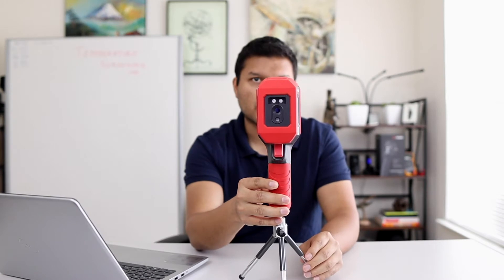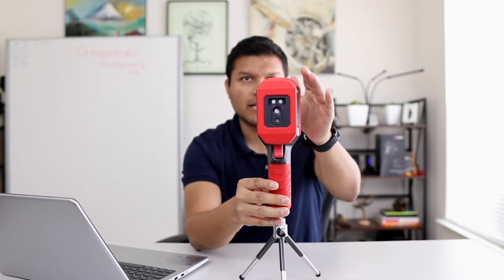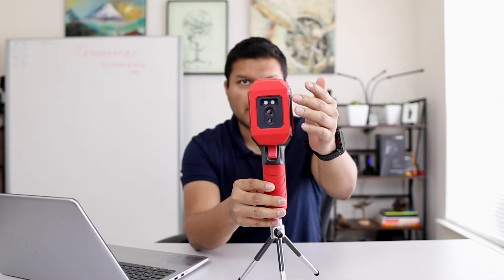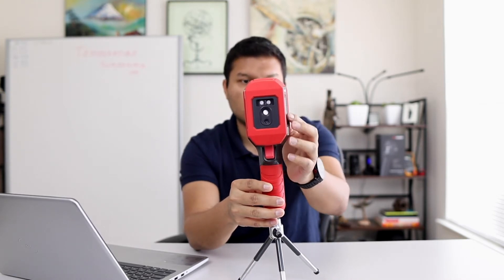Going back into the JT66K, right out of the box, this is what you're going to be getting. Pretty much a handheld thermal imager, great for screening body temperature. You can mount it on a tripod here. Looking at the unit itself, notice it has this nice red rubber coating, protecting the unit.